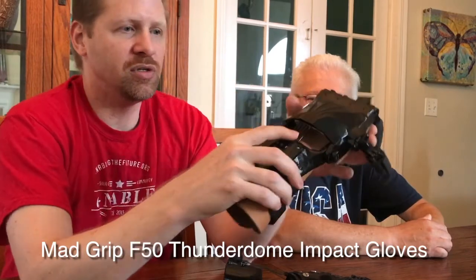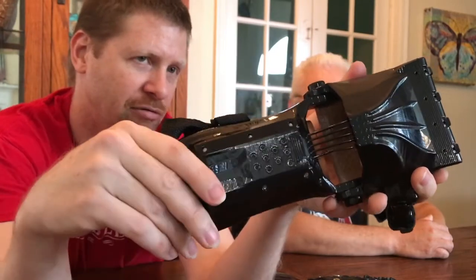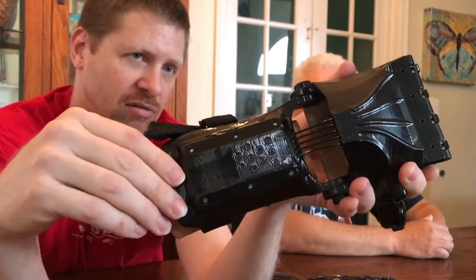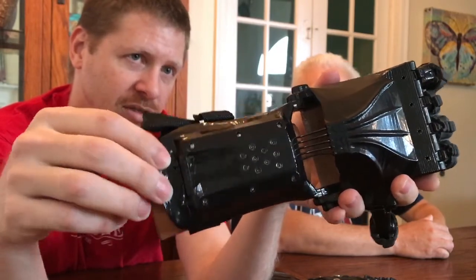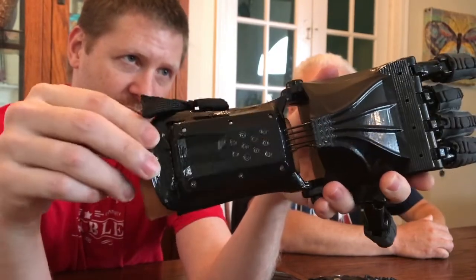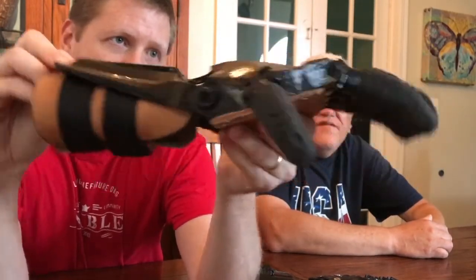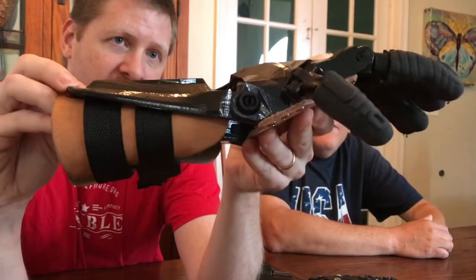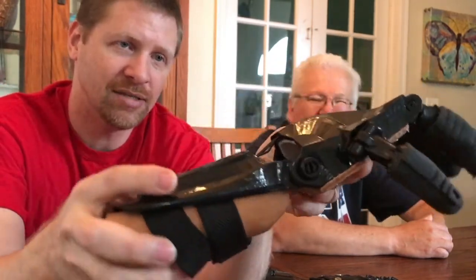As you can see in the close-up, this design uses a thick nylon monofilament — that's the only set of tension cords or tendon lines in this design. Those operate both to bend the fingers and to pull them back, and that's part of what gives it stronger grip strength, because you're not relying on thin cables and elastic cords.